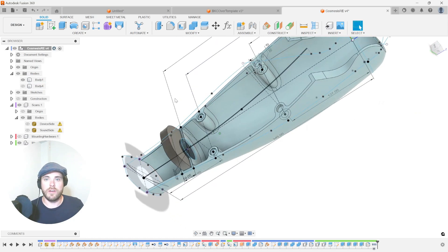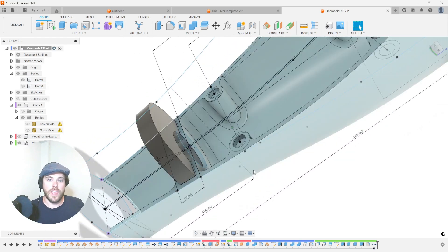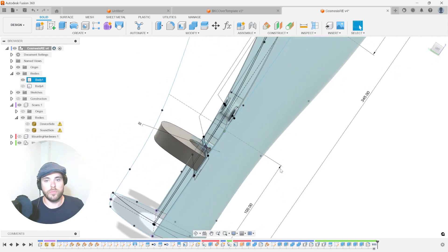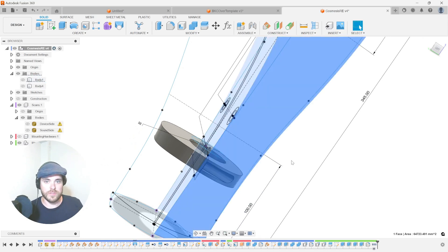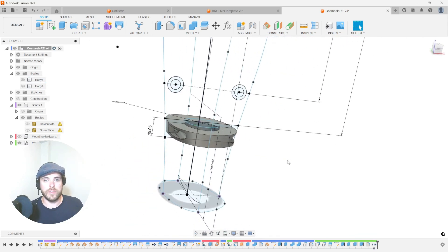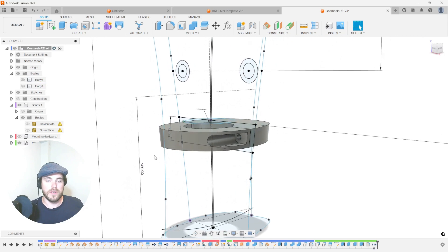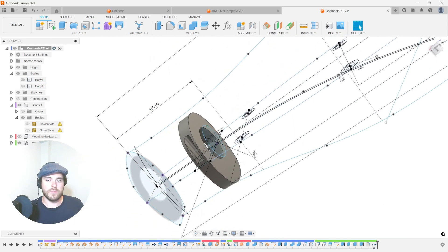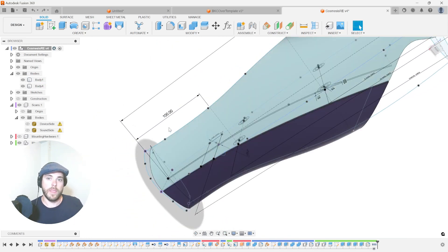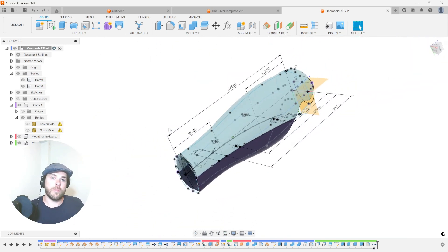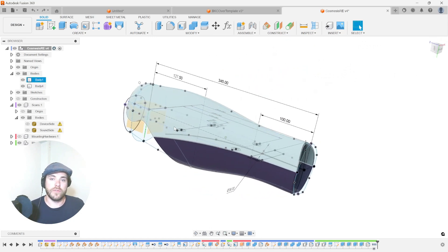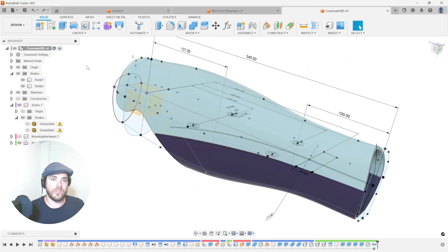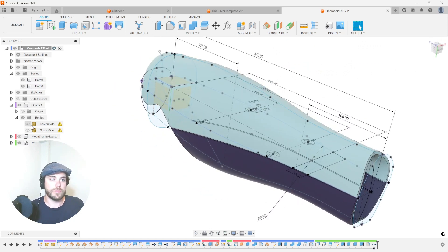This template has everything you need to get started, including mounting hardware for magnets or pins, and then a collar as well, so that you can connect it to a certain height based off of whatever area the pylon is in. So all these pieces are made. The template has been made. We want to be able to turn that work into a 10-minute workflow for your next patient.